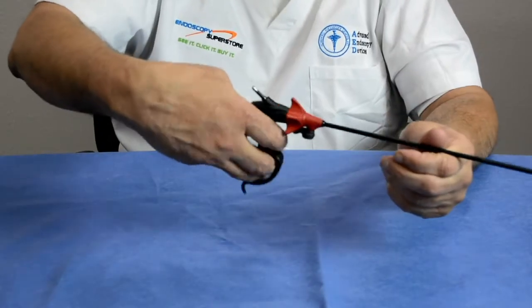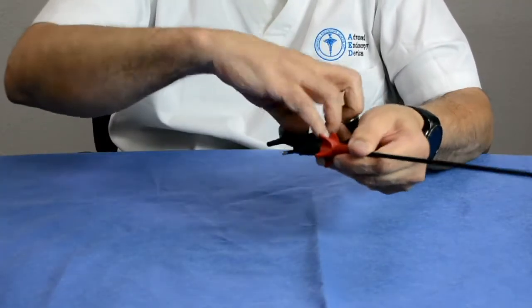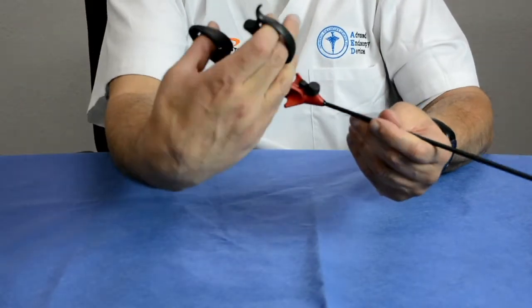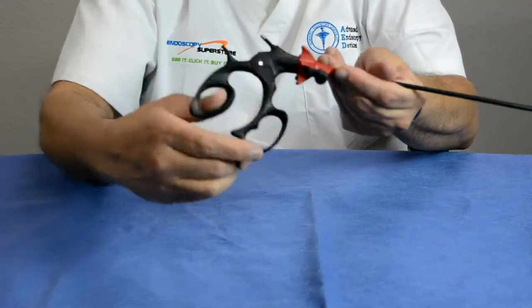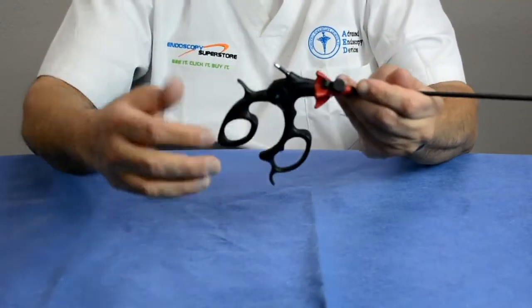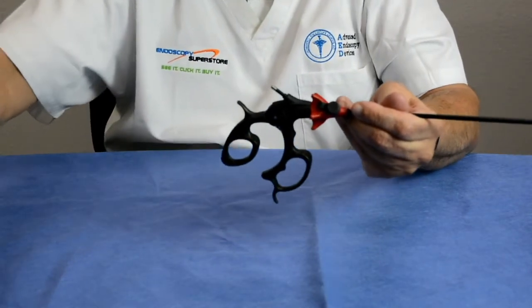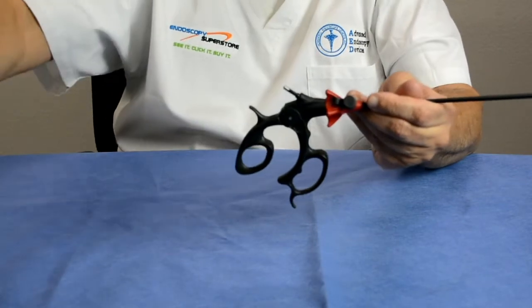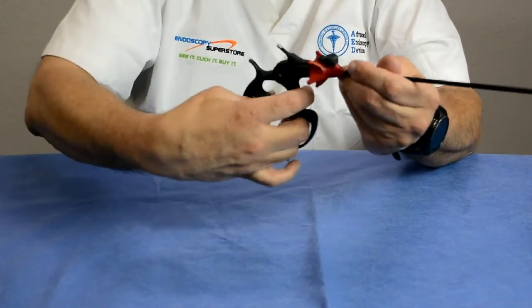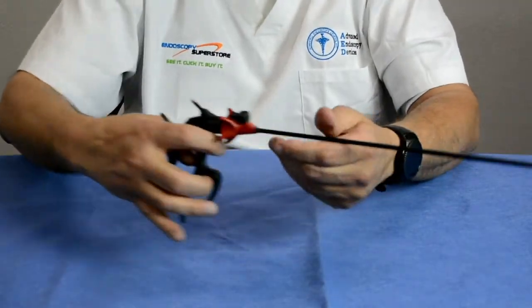Holding a handle in a certain way for extended periods caused a lot of wrist fatigue for doctors. So companies developed more innovative handle designs that allowed the instrument to be used and held in different ways. These more ergonomic handles allowed the doctor to position the instrument much better, reducing fatigue compared to the traditional design.